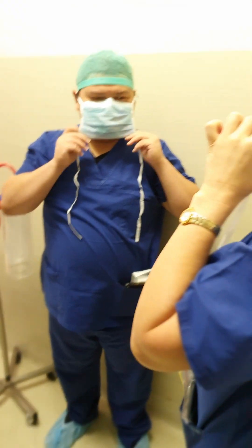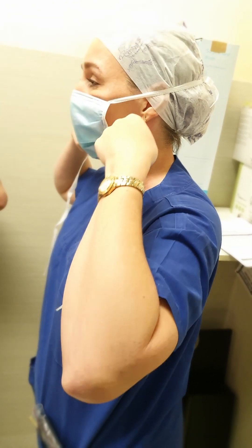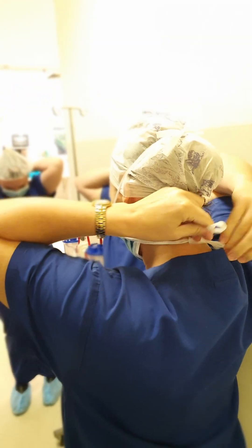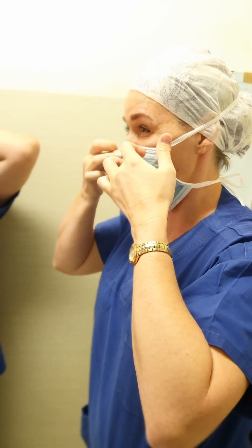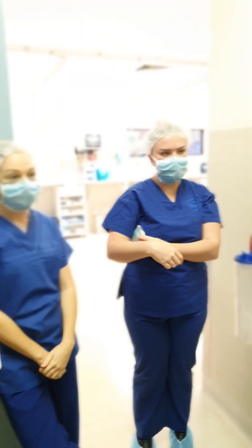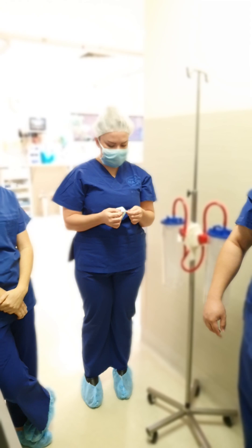So when you've done that top knot, slide your fingers down and give it a little pull. Bring it in under your chin. Once that's nice and comfortable, you can do it around the nape of your neck. This one doesn't have to be super tight — just comfortable. I usually tie a little bow and then give it a little pull and just sort of loosen it off a little bit. Then you can come back and really adjust in here, make sure it's pushed in nice and firm. If you've got goggles on, you might fog up, so make sure you've got as best a seal as you possibly can. If you've got a shield, you'll have the shield. Now we're ready to scrub — that's our very first thing to remember is our mask. Now we're ready to scrub.